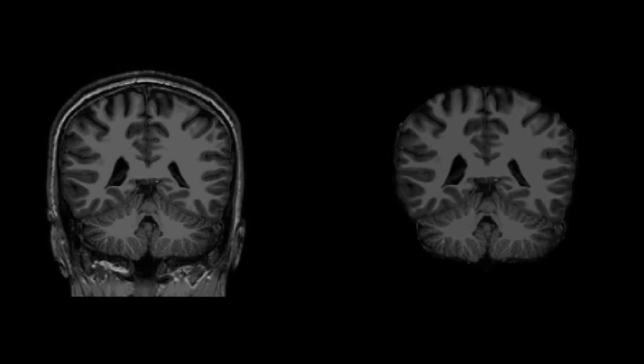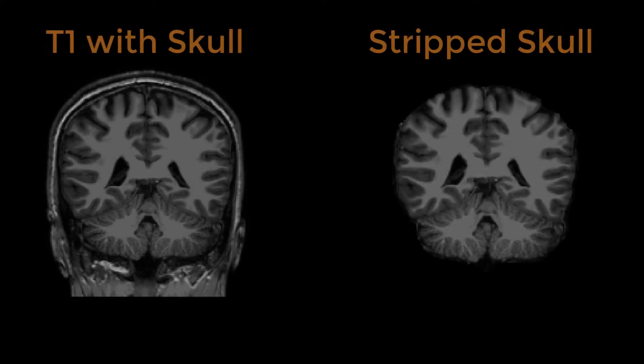Removing the skull, or skull stripping, is an early step in Recon All. This ensures that FreeSurfer does not misidentify the skull or the dura mater as cortex.